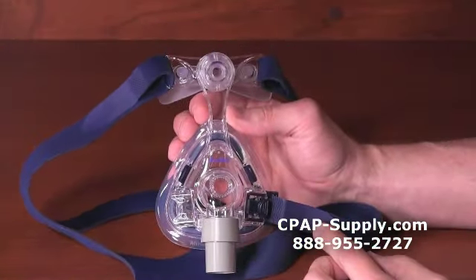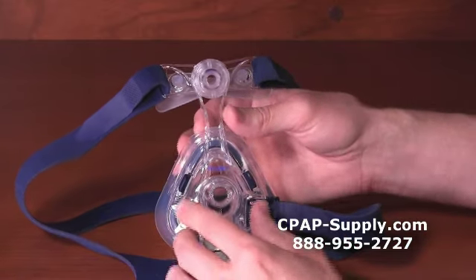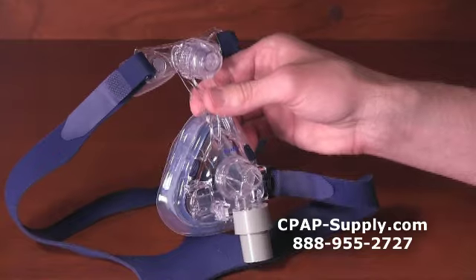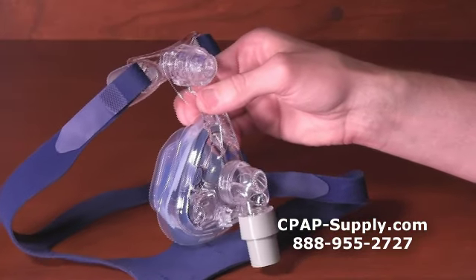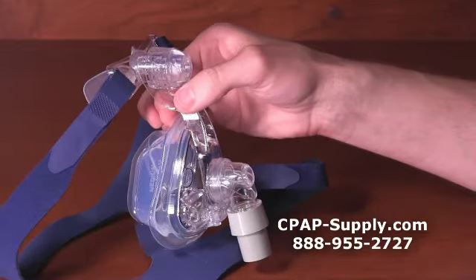If you use a humidifier with your CPAP machine, we recommend the original Activa nasal mask, because the vents on the Activa LT can whistle if moisture accumulates in them. So the Activa LT is not recommended for use with a humidifier.